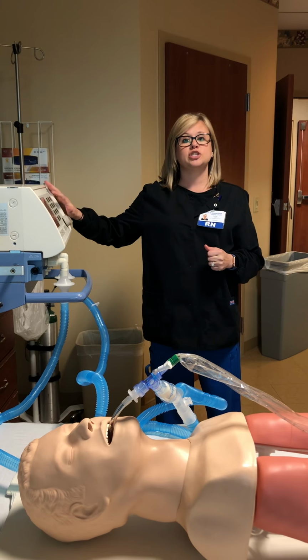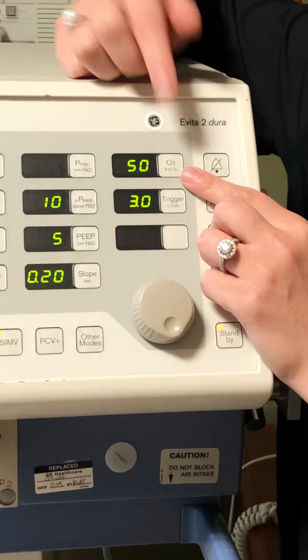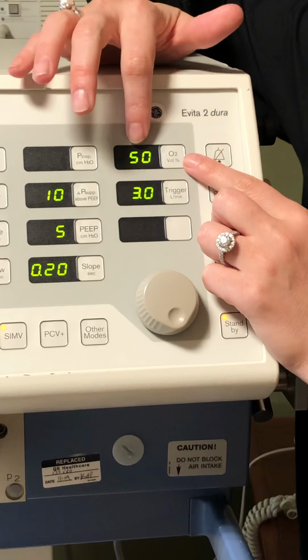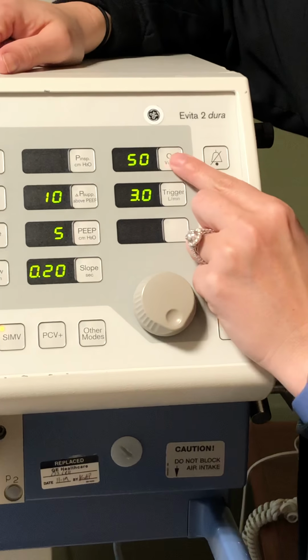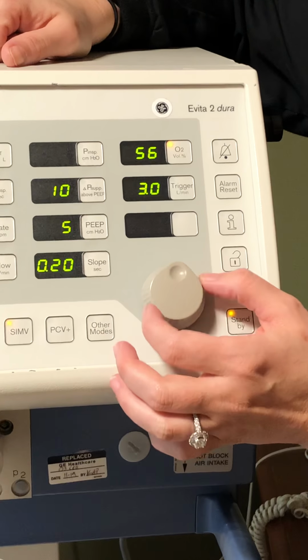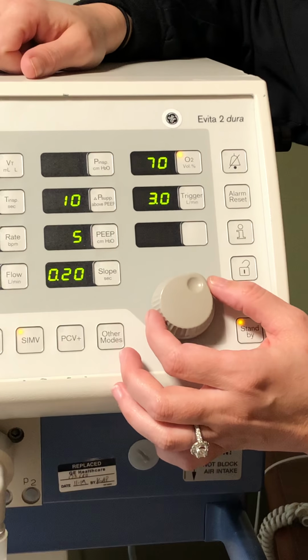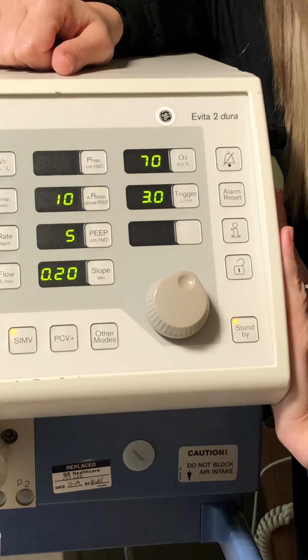It is right here. So if the patient is at 50% FiO2, they may say go up to 60% FiO2 or 70% FiO2. And this is only temporary, just to help the patient catch up, to help build back up their reserve. So what you would do is you would press this button and you would toggle to whatever selected FiO2 the respiratory therapist recommends. So we'll go to 70%. So there we go. And then press the button and now it's set at 70%.